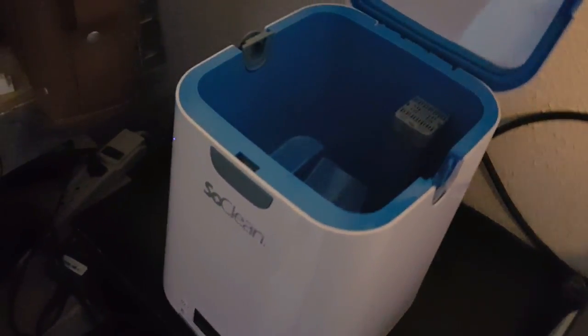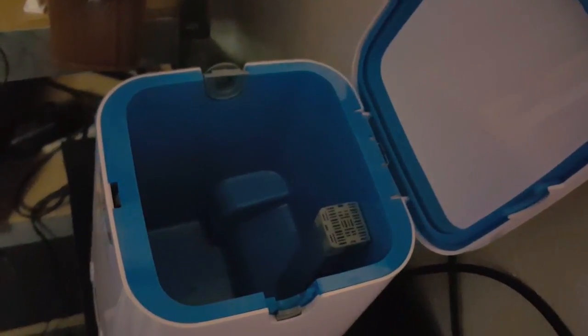I literally just tried this unit today - it was the first day. What I really recommend is getting this when you're about ready to get some new equipment. You take your new equipment - chamber, hoses, mask, and pillow - and put it through this pre-wash solution they provide. It's a pretty good-sized bottle; you just put two capfuls in about a gallon of water - kind of like soapy water. Then rinse it off, wait for it to dry, put it all back together.